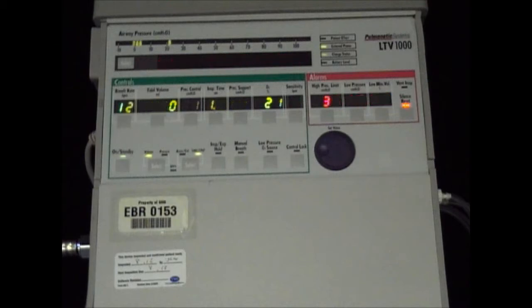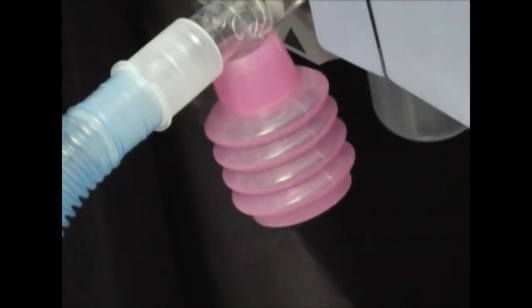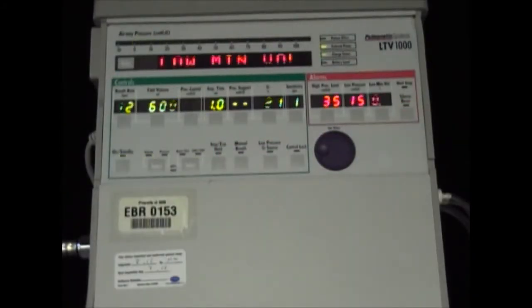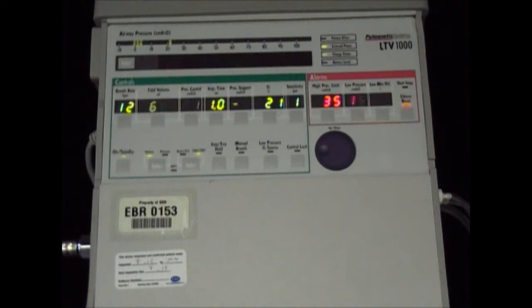The EVR is a small bellows device that prevents nuisance alarms, which can occur when the speech cannula is in use. In order to prevent nuisance alarms, we connect the EVR in line at the Y where the exhale tidal volume is measured. The EVR works in conjunction with the compliance of the ventilator circuit to return a small volume of air to the ventilator during exhalation.